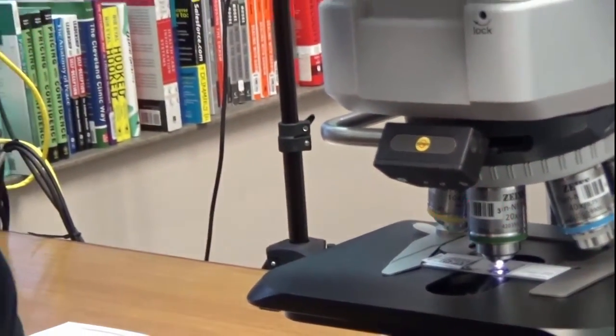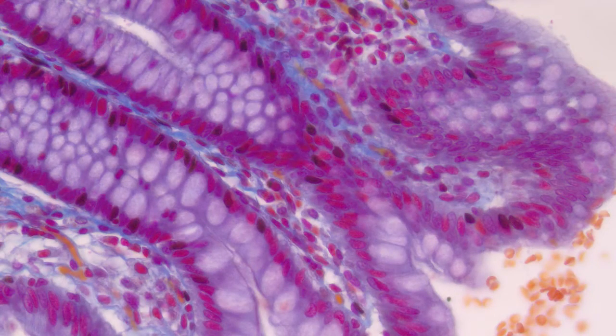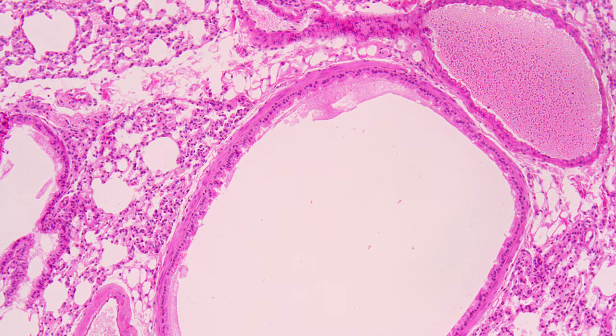Second, we apply a flat field color correction for even illumination specific to each objective, which can eliminate post-processing.